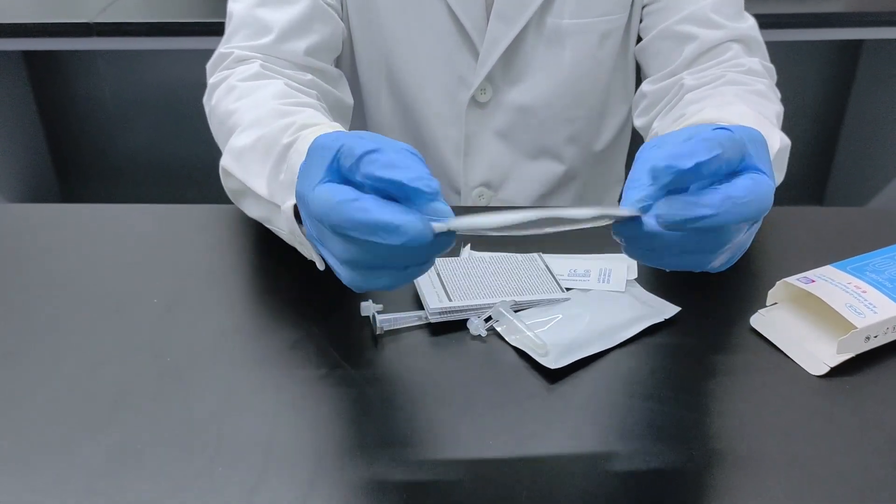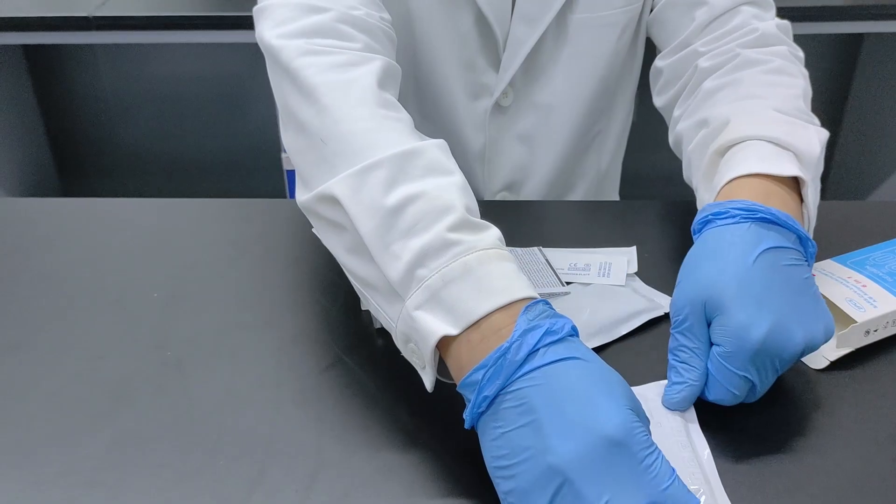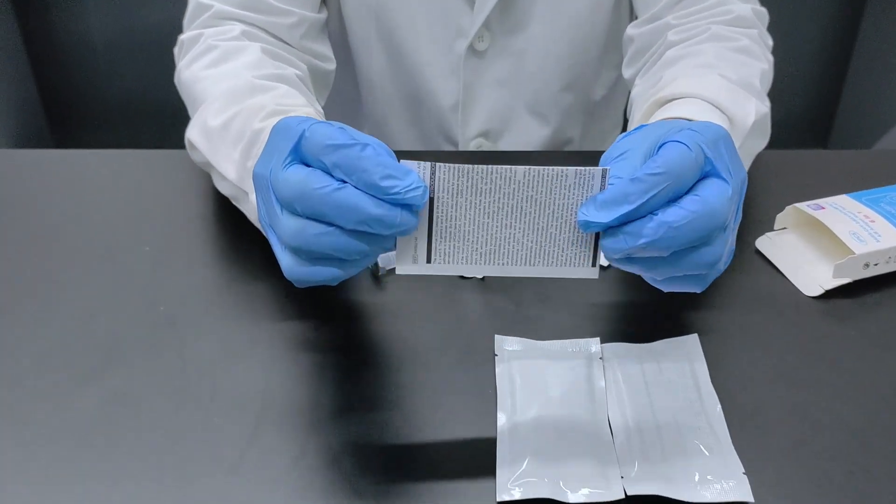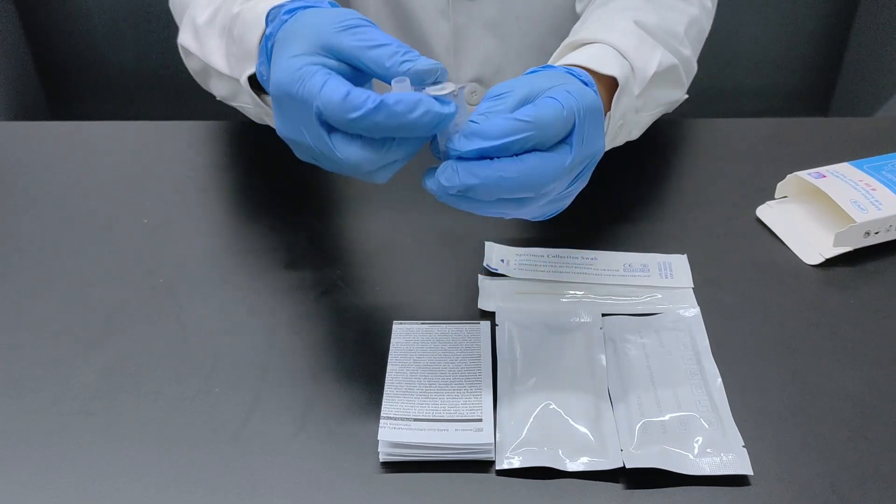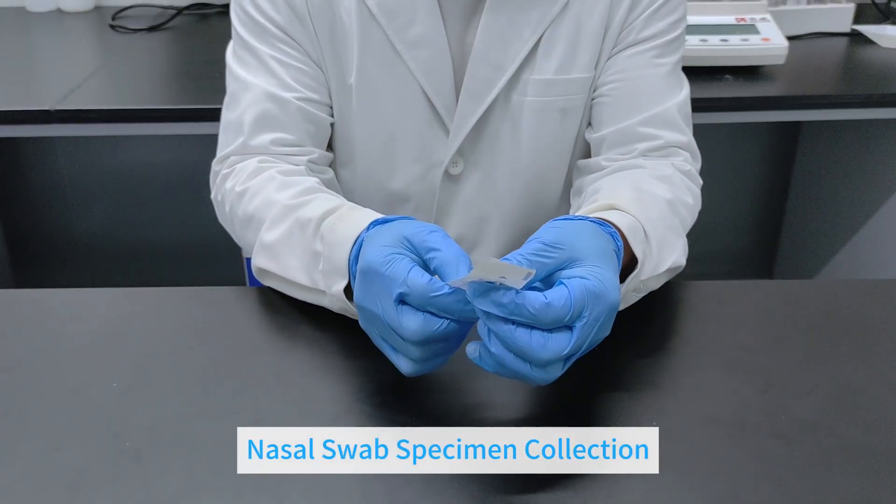Components: Test Card, Instruction for Use, Sterile Swab, Sample Extraction Buffer. Nasal Swab Specimen Collection.